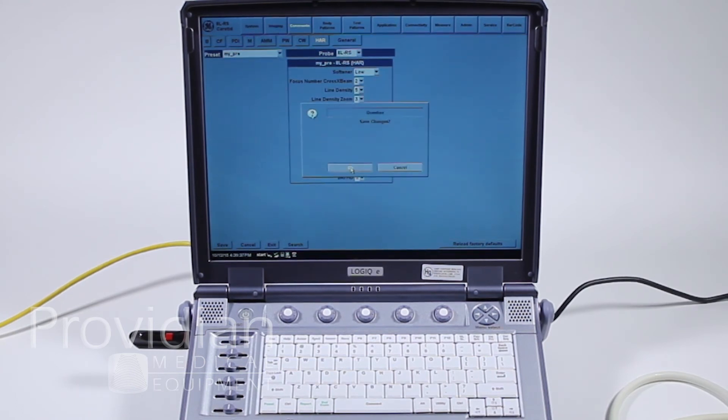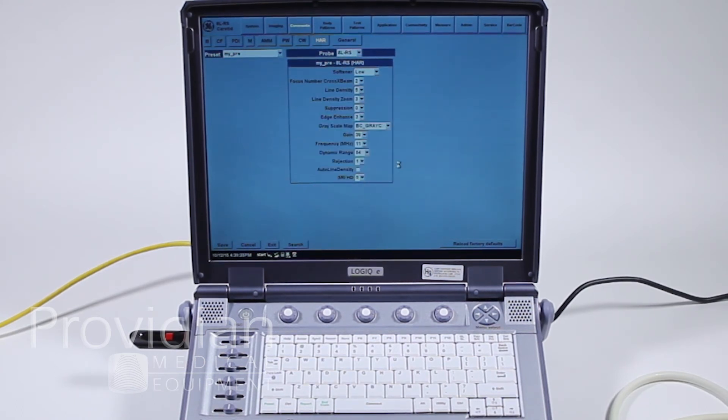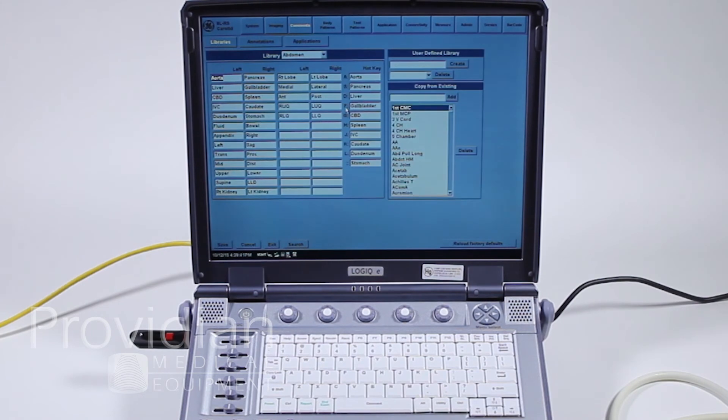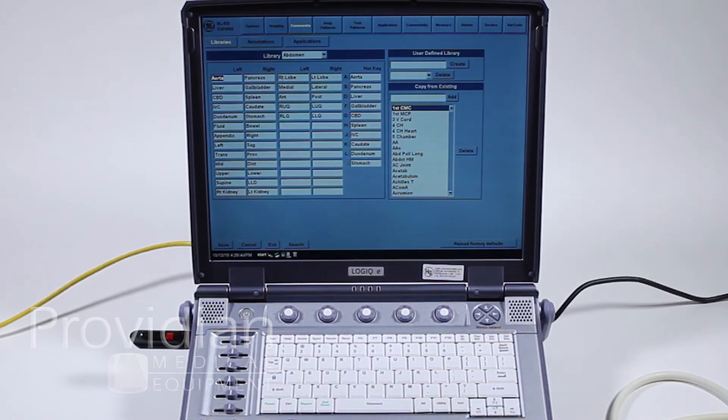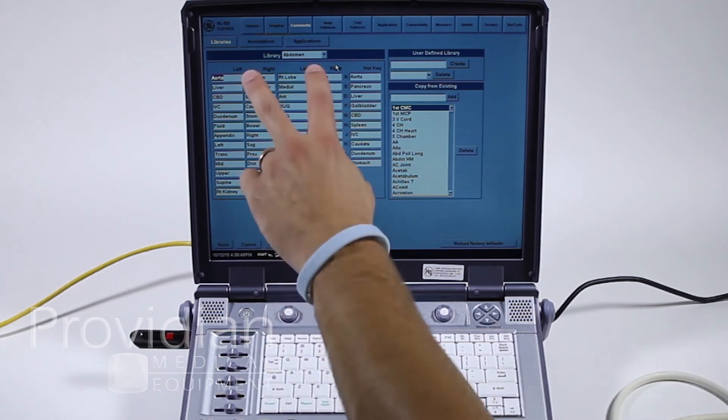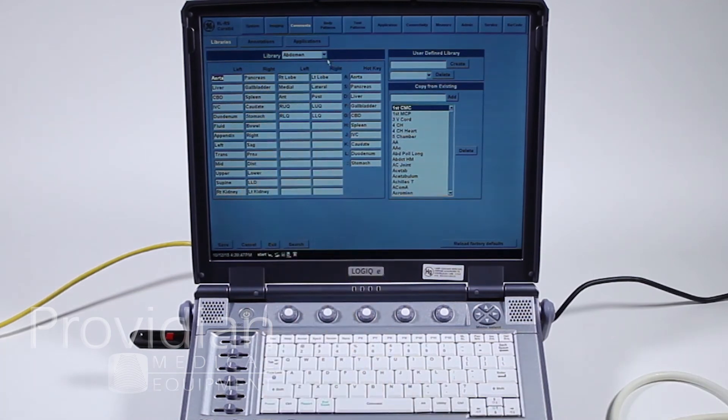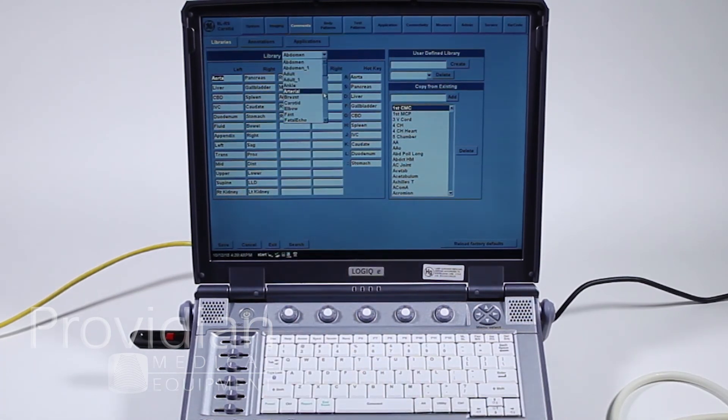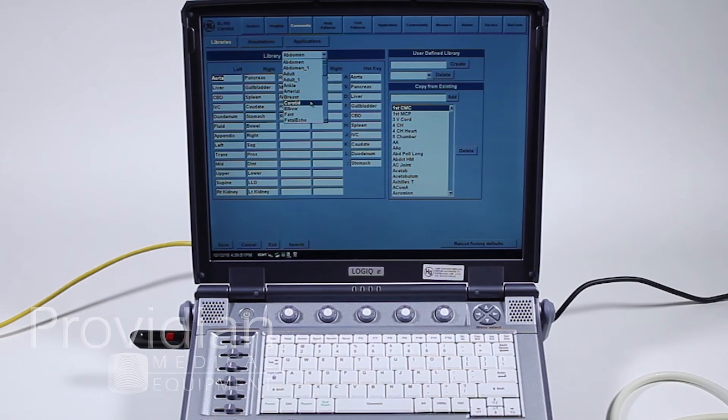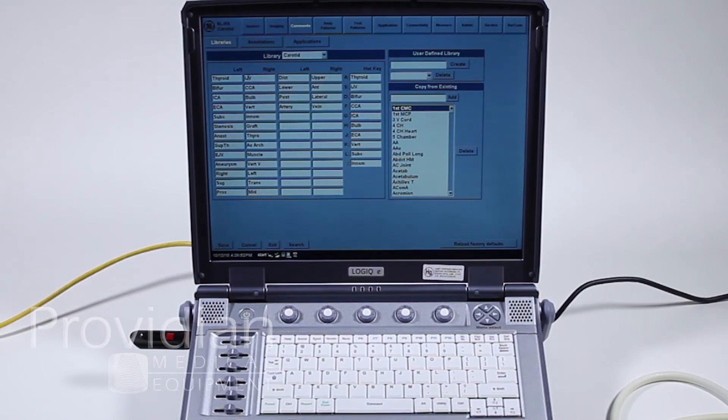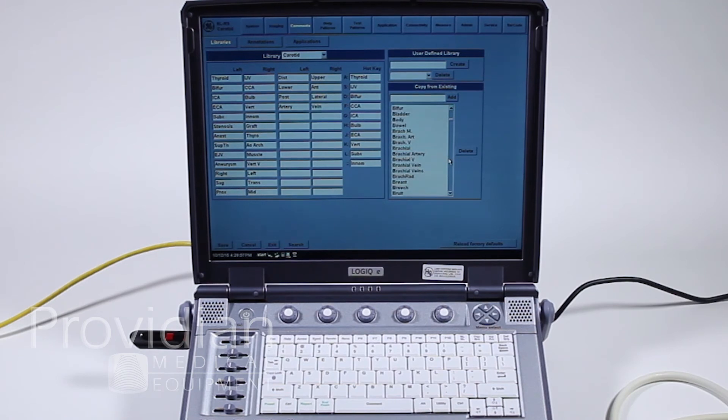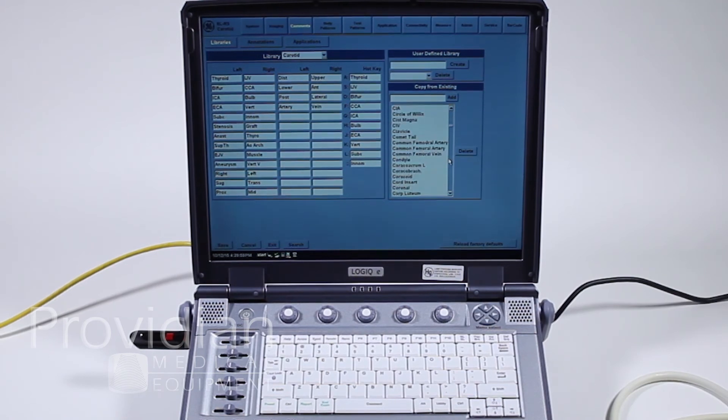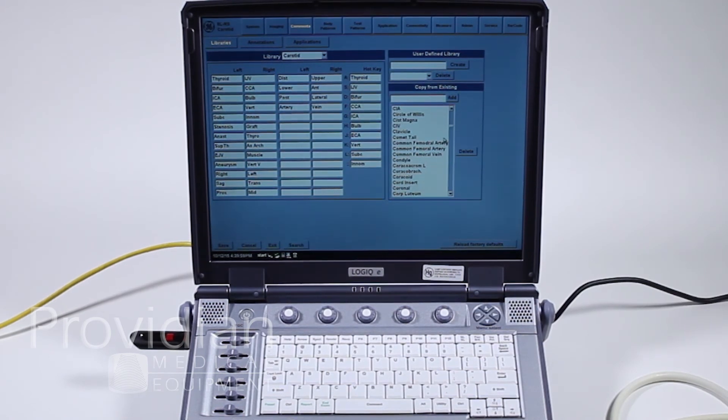Next comments, this is where you can make, I'm not going to save those changes. I'm going to comments and this is where you can make your own annotation library. You can overwrite any of these. And this is that menu that showed up on the left hand side. So the one we saw was carotid. So we can go here and we can overwrite any of these. And then there's more of a library over here that you can add to the library.